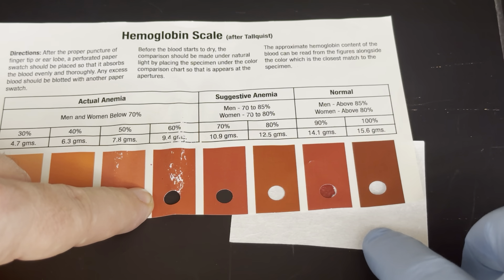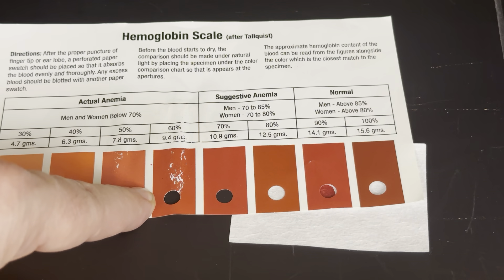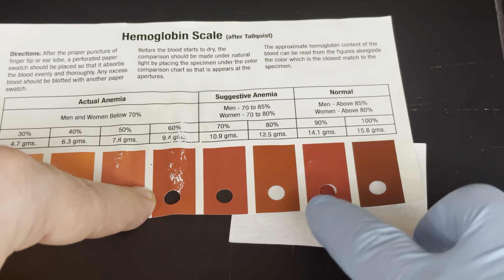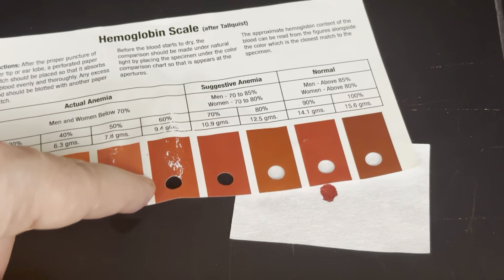Taking a look, since this is my blood, it looks like I'm around 14.1 grams per deciliter. Having just gone to the doctor and had my blood drawn, I was at 14.5, which is considered normal for a 40-year-old male human — well inside the normal range. We will be doing this in lab, where you'll be sampling your own human blood given to you by your professor.